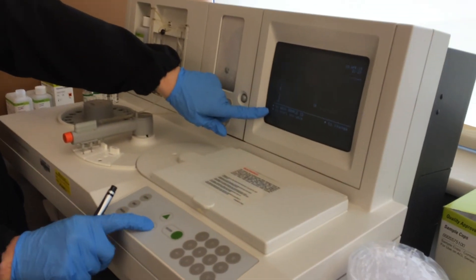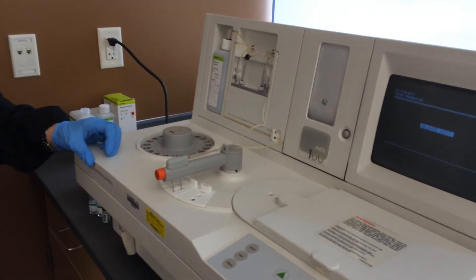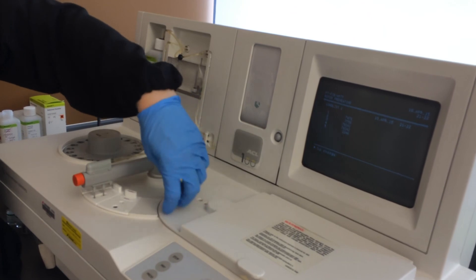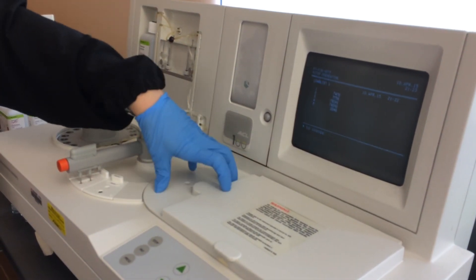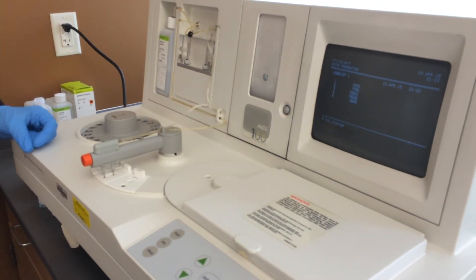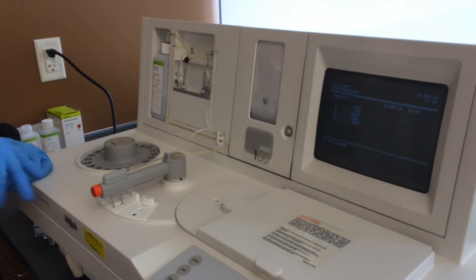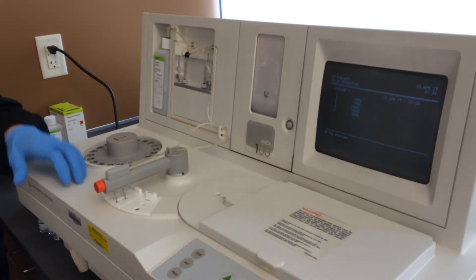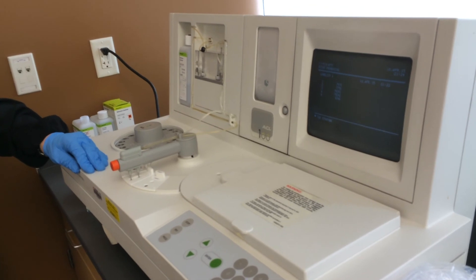Now it gives us the option to press down to start. Now it's telling us the rotor is preheating. To conserve energy, it doesn't stay at 37 in there — it must have about a two or three minute heating time for that rotor. It has to get to 37 degrees. Once that's ready, you'll see it start sampling. These kinds of machines are nice — if you have a lot of work to do, you load the machine and go do something else.